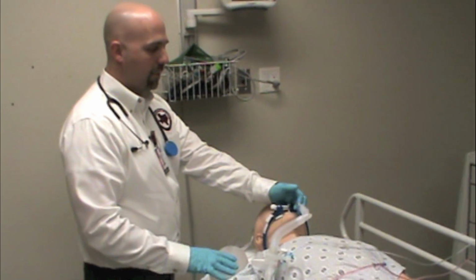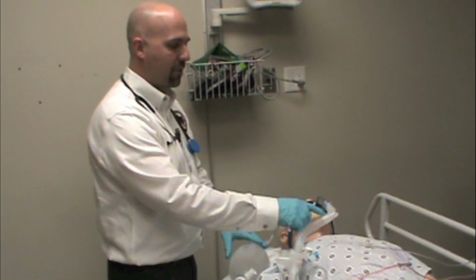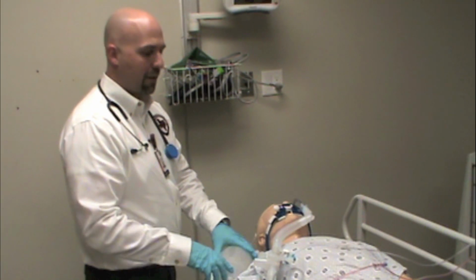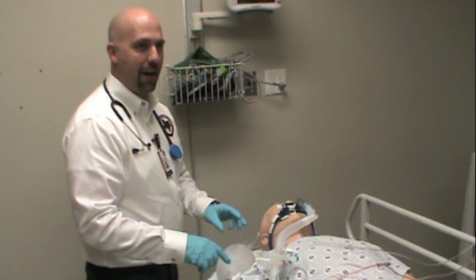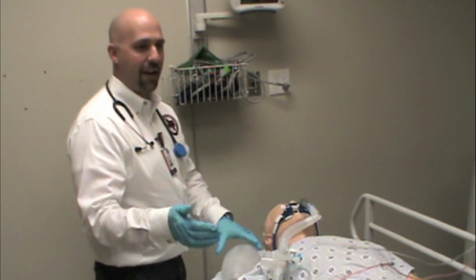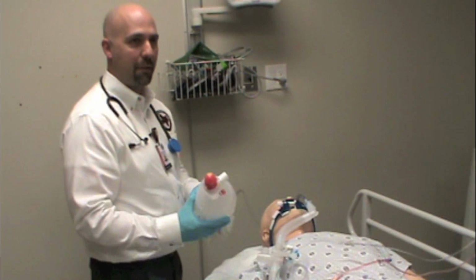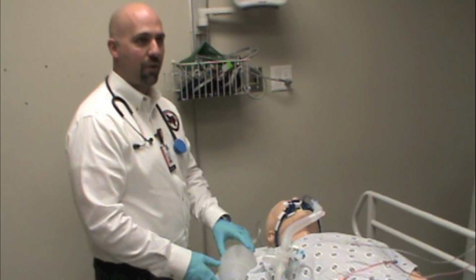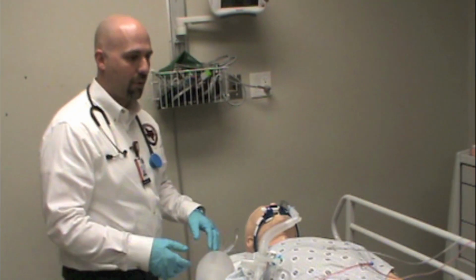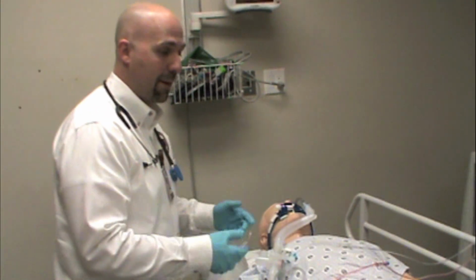That's why it's always really important to try to minimize the number of times you swap over from ventilator to ventilator or ventilator to BVM. So if I was going to do a transport where I knew I had a patient that was on a ventilator already, I would bring the ventilator to the bedside and not bag them out of the facility on a bag valve mask. That way you make sure you keep PEEP in the chest and you keep their alveoli open, which is what works best for the patient.